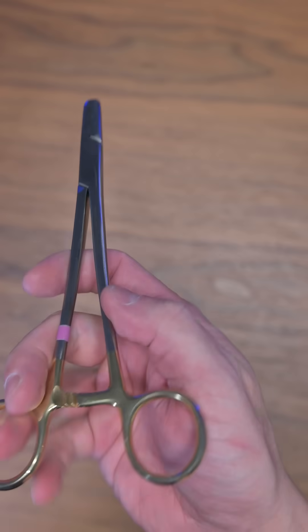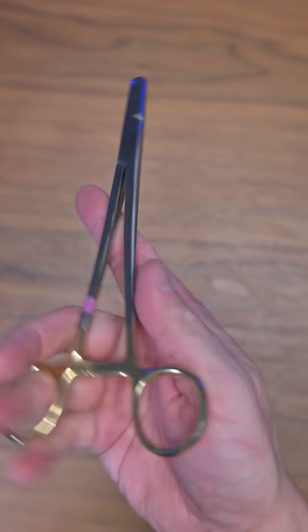Finally, walking the driver — being able to move from the ringed position to the palm position without using your other hand — is also an important skill.